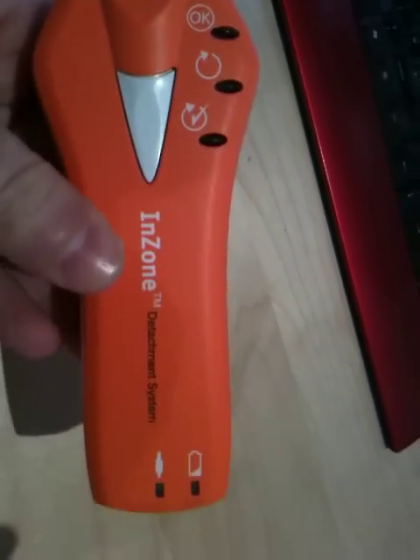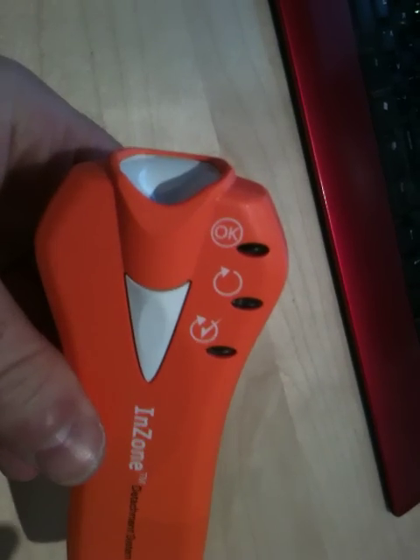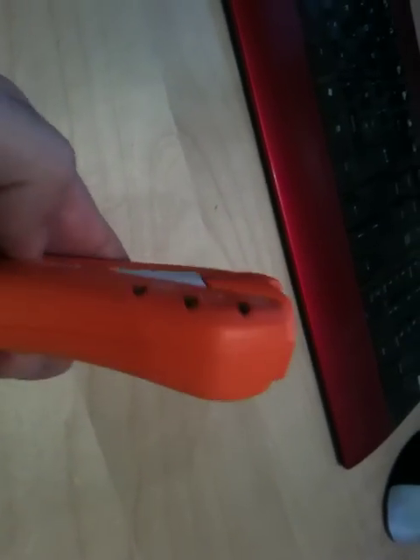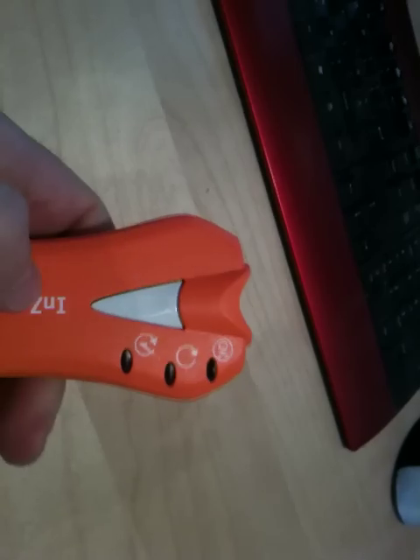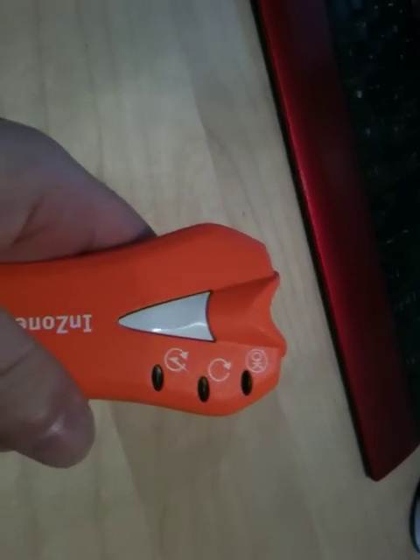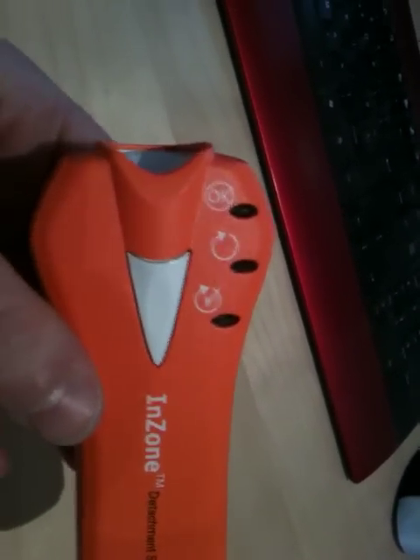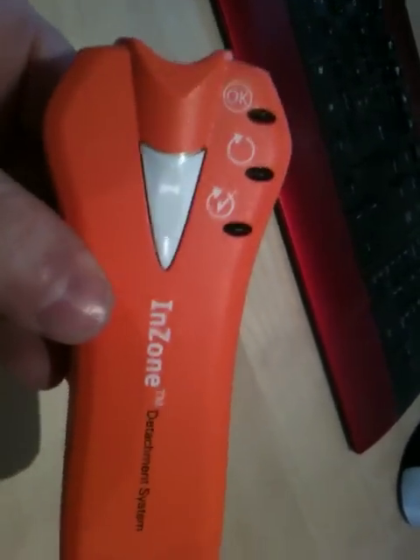This is a very delicate piece of equipment and needs to be done with very high reliability. It may take the surgeon 45 minutes of fiddling around in a very high-risk area to get the coil into the relevant place. If the coil fails to detach, it has to be pulled out. And if this is the third or fourth coil that's gone into an artery around the brain, you really don't want to pull it out because it might pull the others out and then you've got a real mess on your hands.